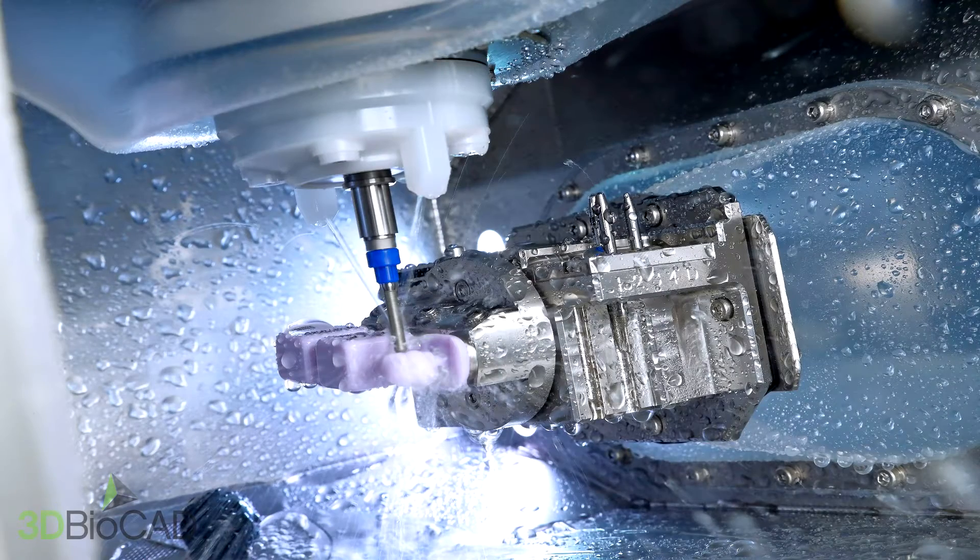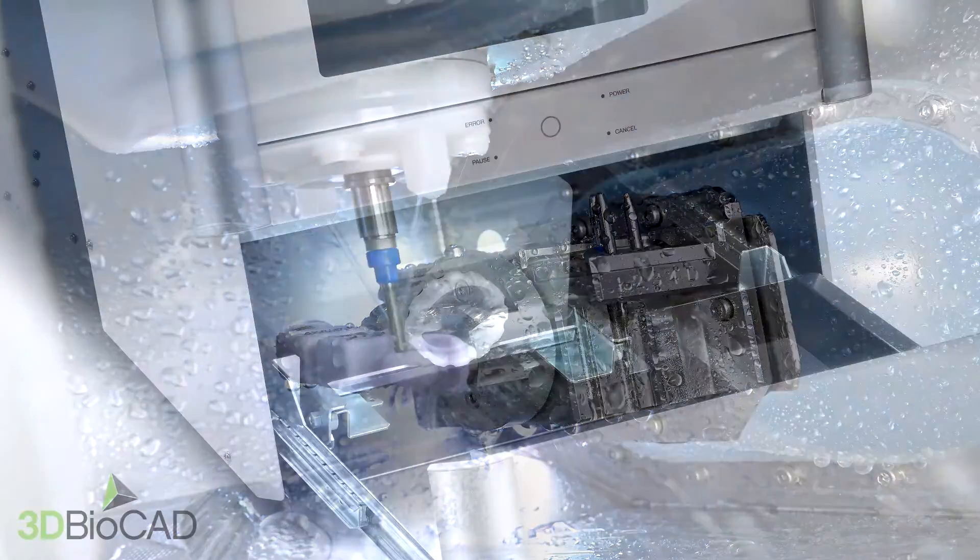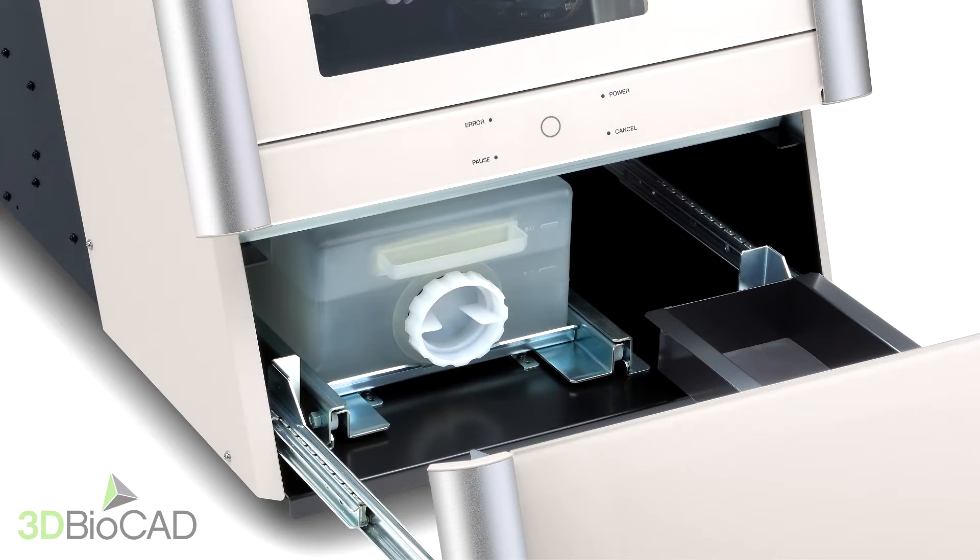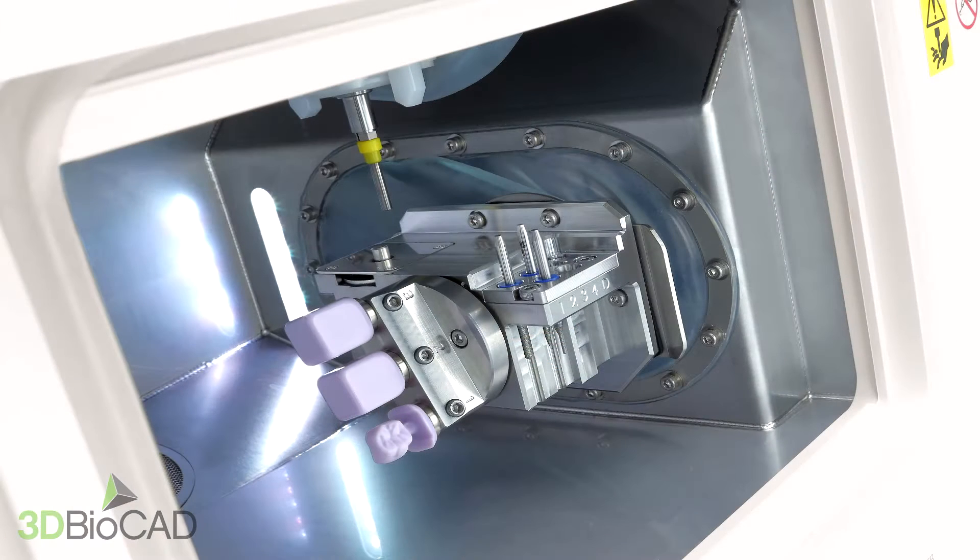Hello, my name is Donald from 3D BioCAD. Today we will show you how to set up your Roland DWX-4W wet milling machine.